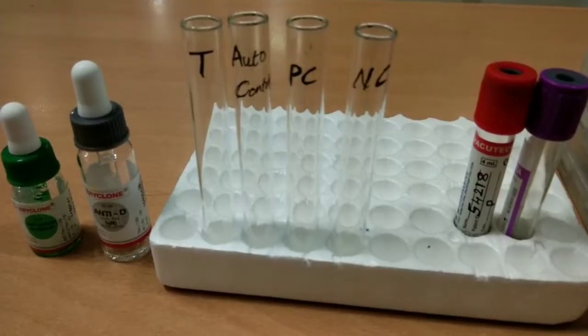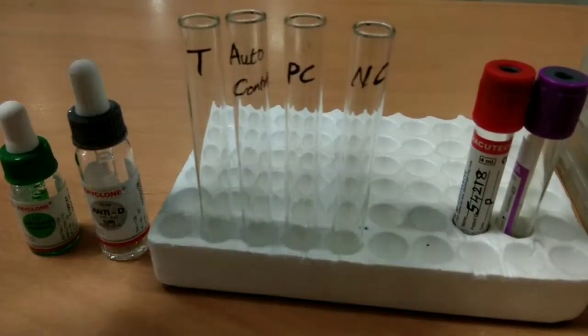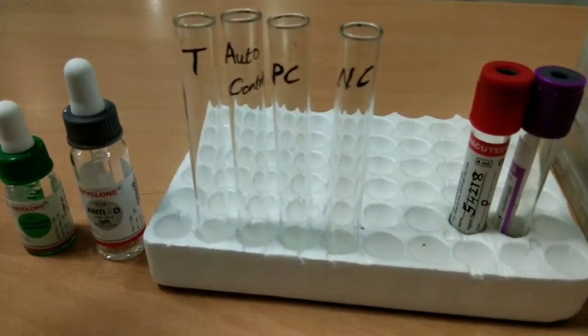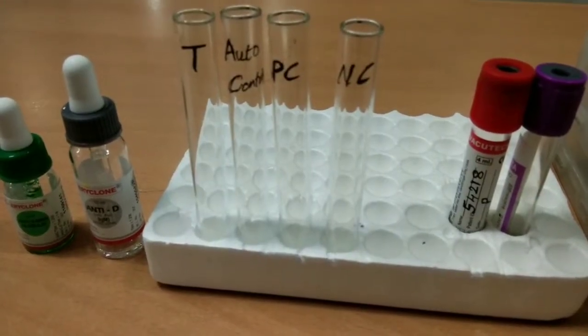Coming to the principle: when patient serum is mixed with O-positive cells after an incubation period, if incomplete antibodies are present, they will be detected by antihuman globulin.